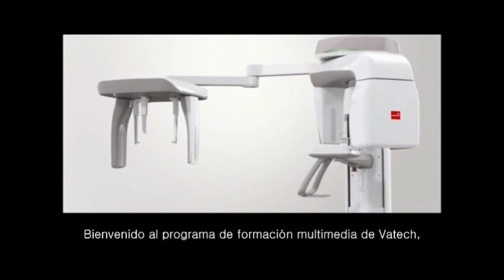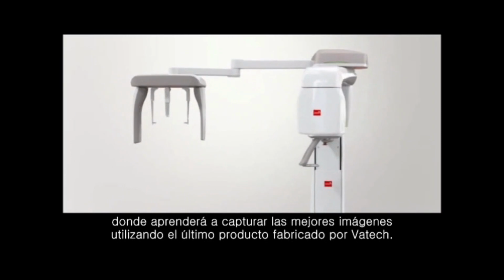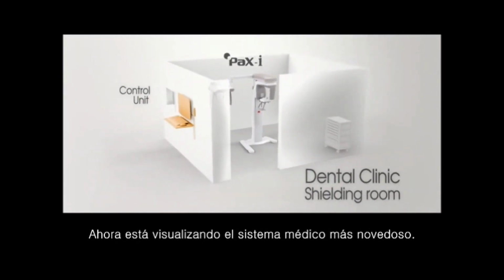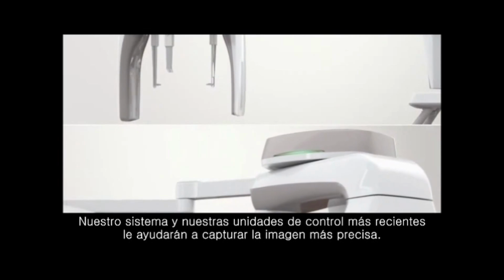Welcome to Vatech video training that shows you how to take the optimum images using the latest product manufactured by Vatech. Now you are watching the state-of-the-art medical system. Our latest system and control units will take you to acquire the most accurate images.